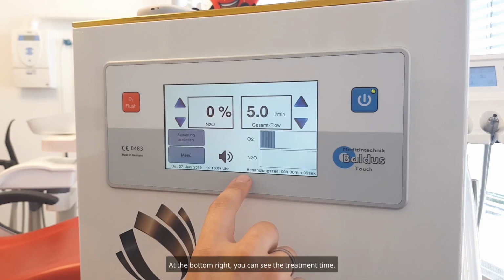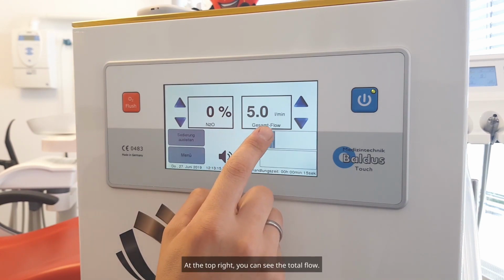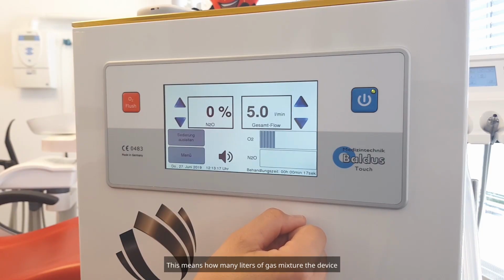At the bottom right, you can see the treatment time. At the bottom left, you can see the date and time. At the top right, you can see the total flow. This means how many liters of gas mixture the device emits per minute.